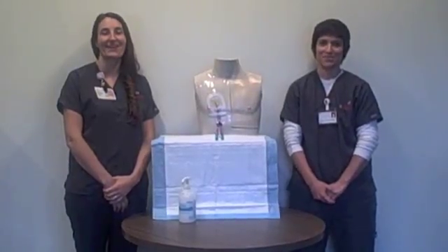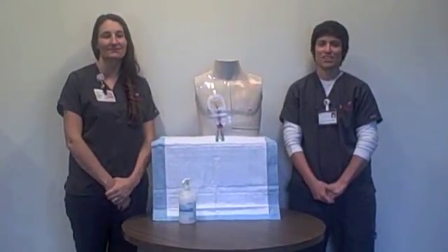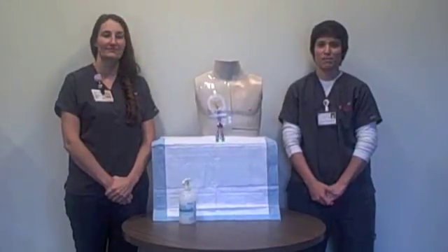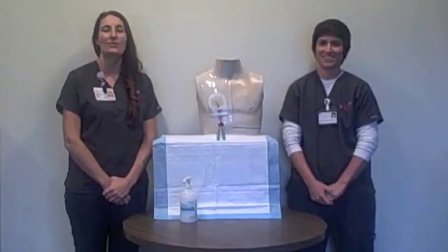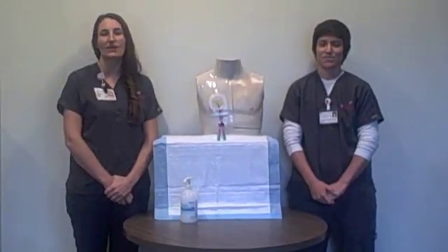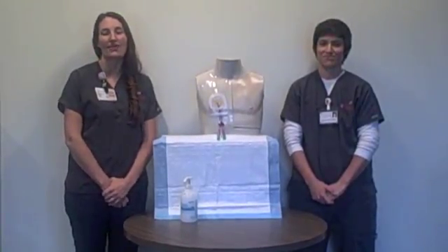Hello, my name is Morgan Oliveira and I'm Jessica McCall. We are nurses here at Stanford HealthCare with the Blood and Marrow Transplant Program. We are here to teach you about your central line care. The purpose of this video is to teach you how to safely care for your central venous catheter at home.